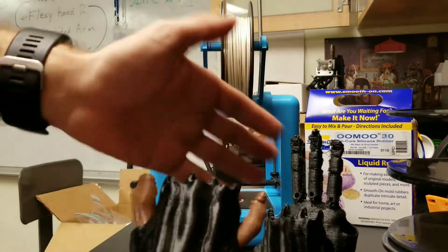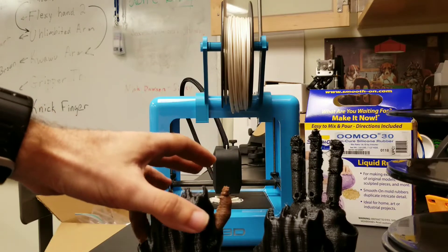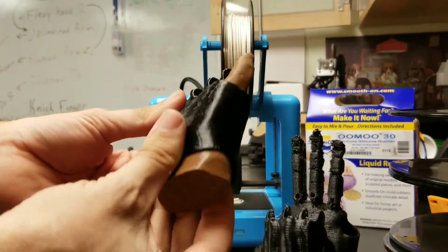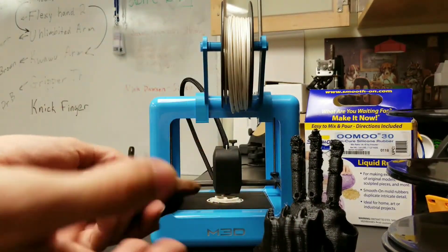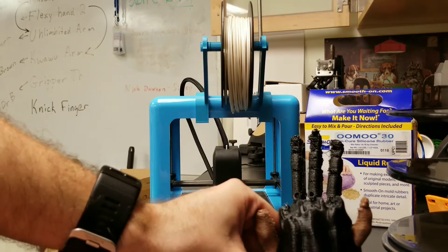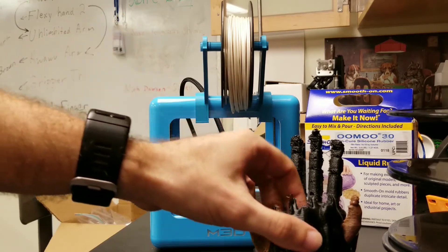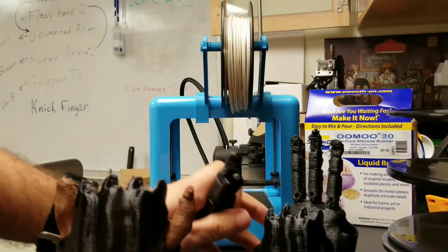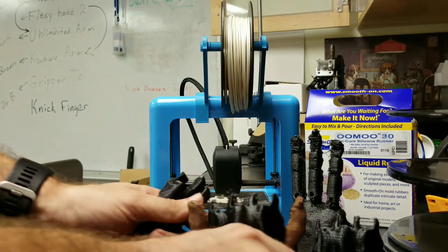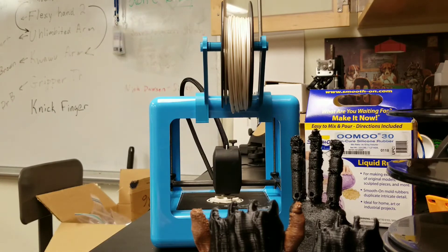My thought is you could use different attachment techniques to get different customized task-specific devices very easily, fitting nicely with this custom-fitting approach in MeshMixer — and MeshMixer is free to use. So you can recreate all of this at pretty low cost, which would work well for schools. The printer is about $200, and the Tuffink spool used to create all these pieces was about $30, with about half the spool still left. So it's pretty cost-effective too.